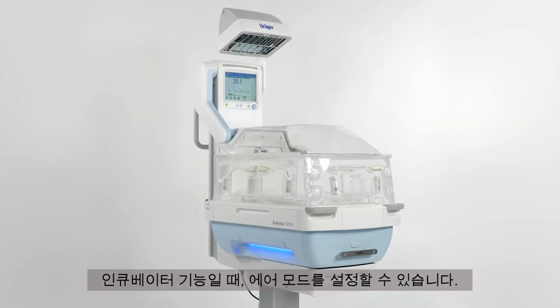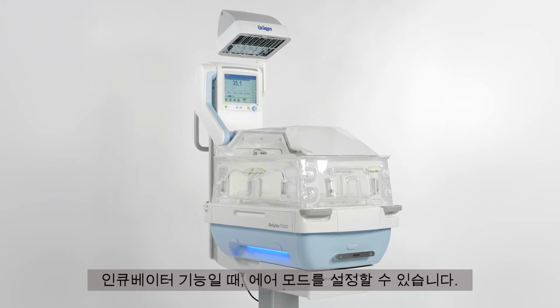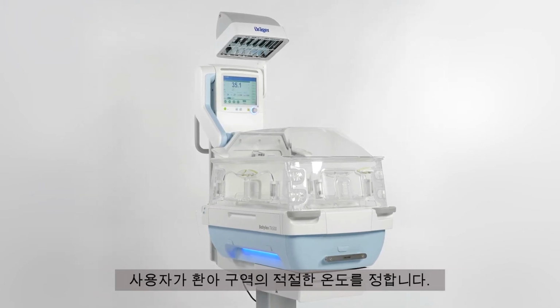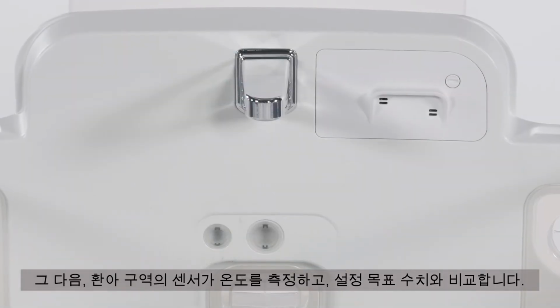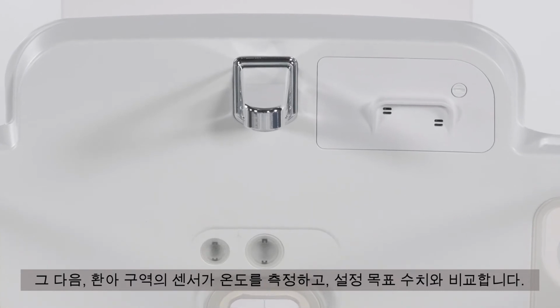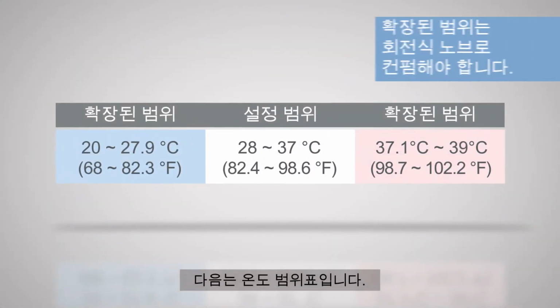You can set the air temperature mode when it's in incubator operation. The user determines the appropriate temperature in the patient compartment. The temperature is then measured by a sensor in the patient compartment and compared with the set target value. The following table shows the temperature ranges.